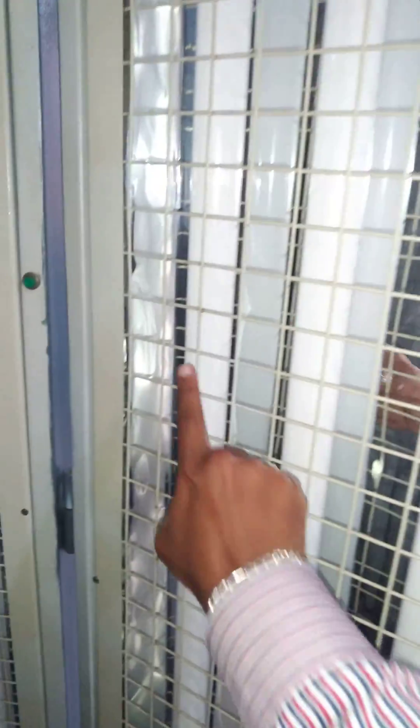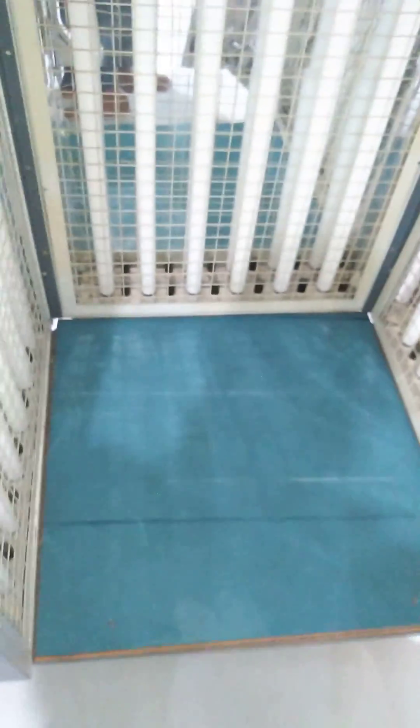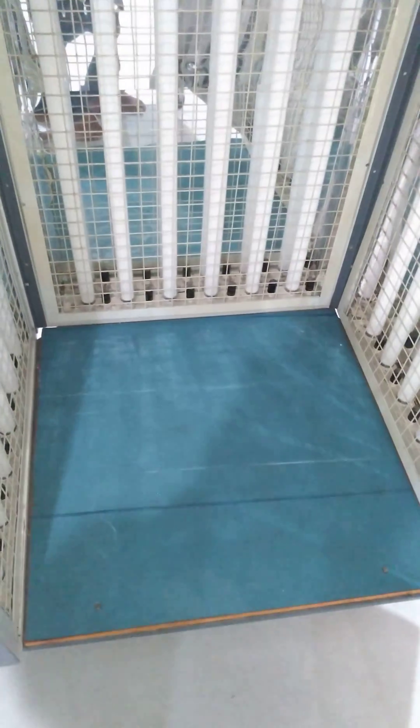six feet long Phillips narrowband tubes here - one, two, three, four, five, six. At the back side it has a high reflective mirror-type finish so that it will multiply the output, and it has a highly sturdy platform.